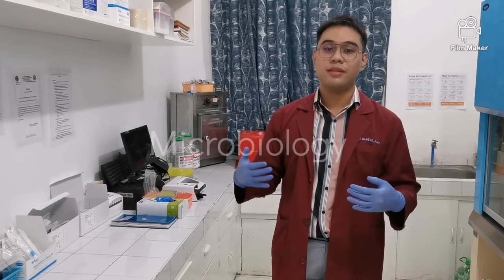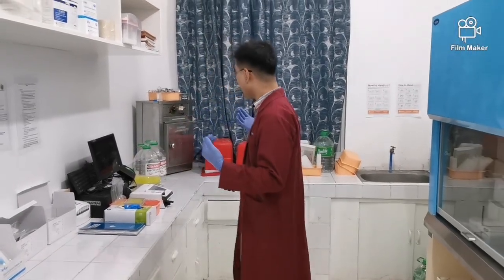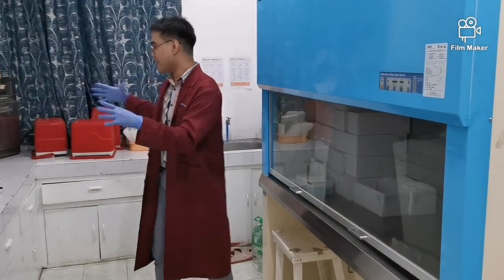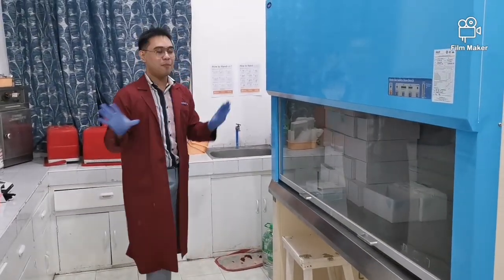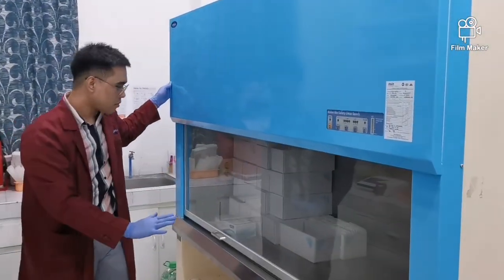So we are now here in the microbiology section, okay? So ano yung typical na makikita mo sa microbiology section? Of course, our biosafety cabinet, okay? I was looking for the Vitec pero wala na pala, okay? So dito na lang. Ito yung biosafety cabinet natin, okay?